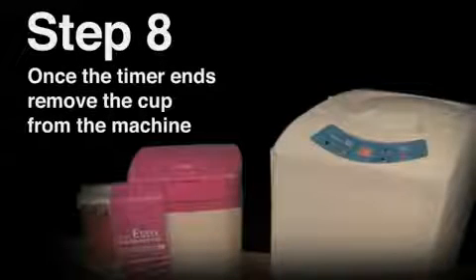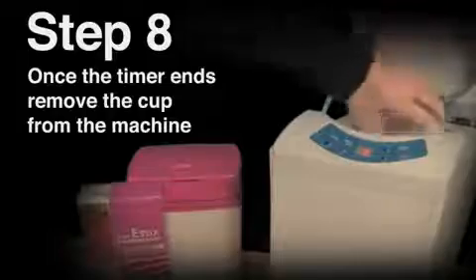Do not force the lid open. It will automatically unlock when it is safe to open. Remove the mixing cup from the Turbo Max. To open the cup, twist to unlock and lift the lid.